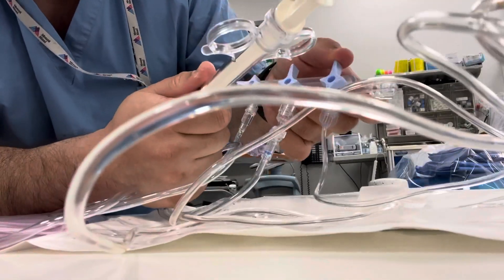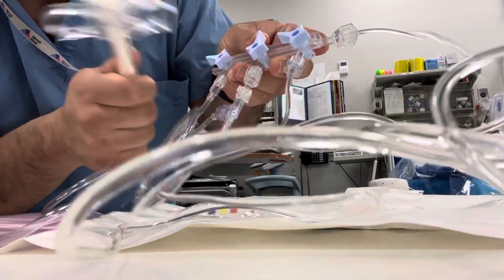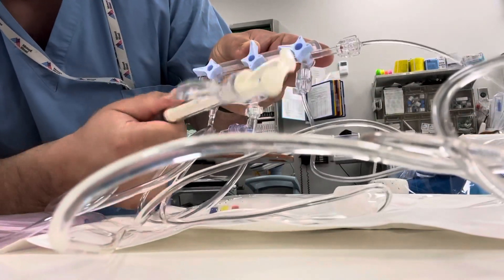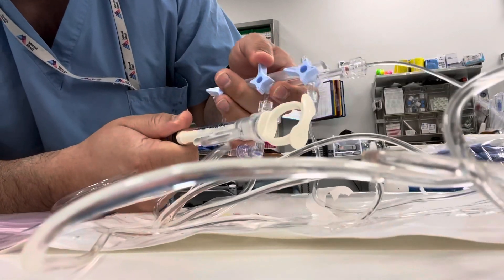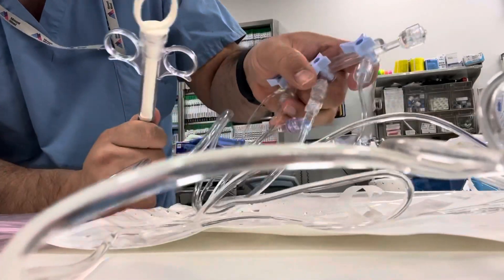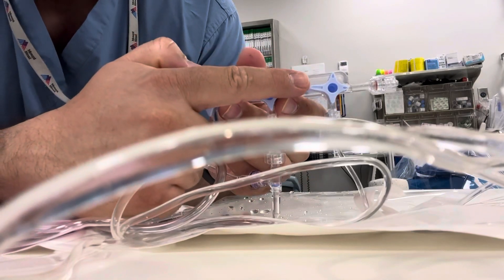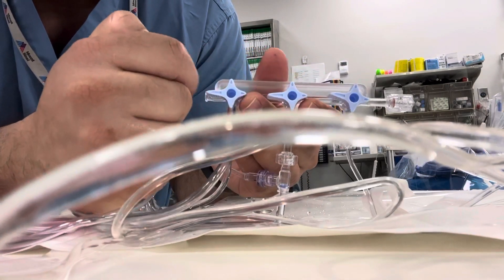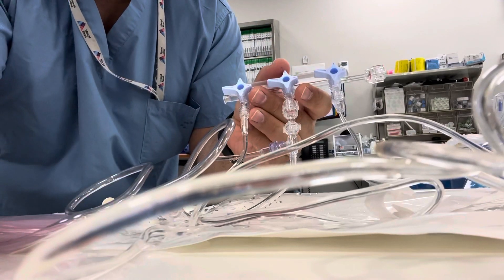Tap it out from the bottom over here, get the water out from here, then close everything. All of the long arrows should point this way, then you connect this and you're done.